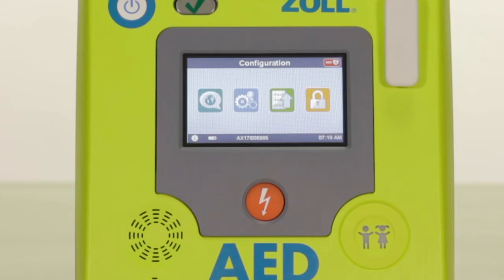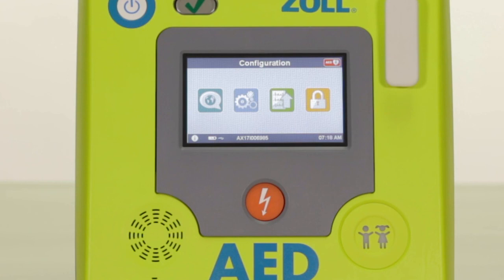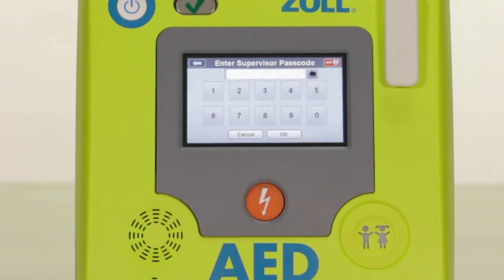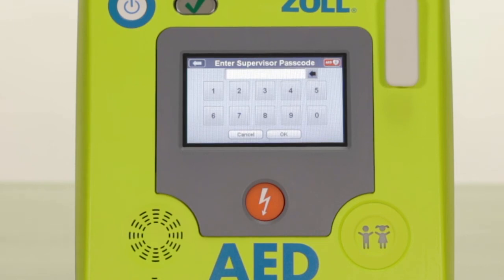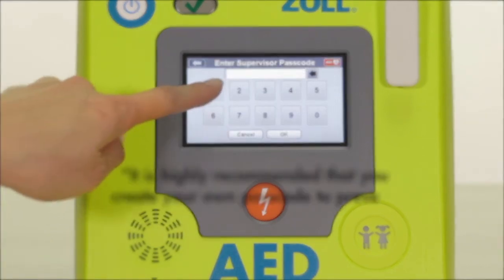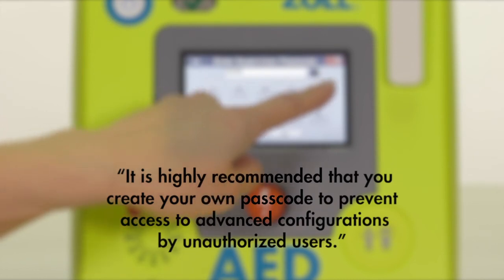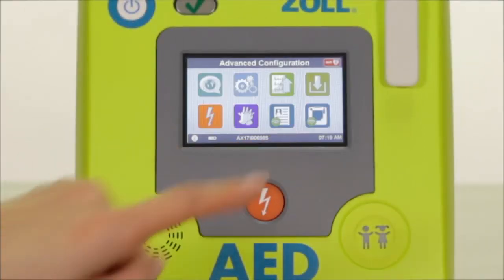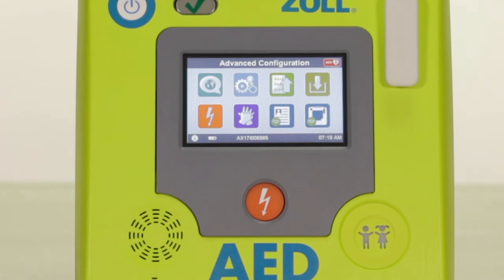The last icon on this screen is the locking feature that allows only authorized users to access the advanced configuration features of the AED. Press the yellow lock icon and enter the passcode. The default passcode on a new AED3 is 123456. You can create your own passcode in the advanced configuration setting, which will be covered later in the advanced configuration segment of this video.